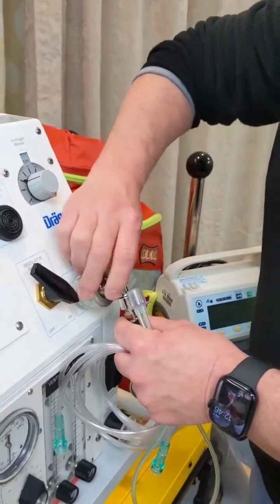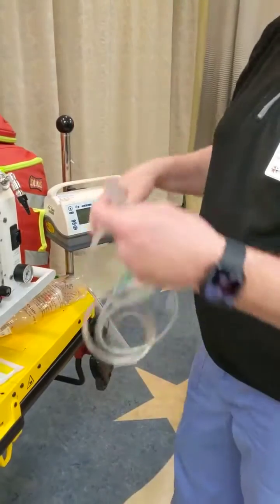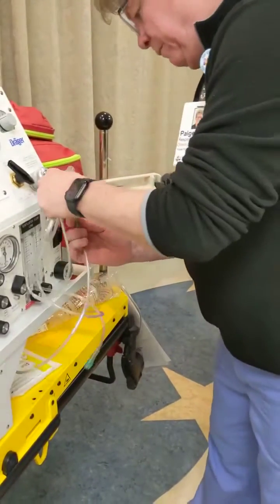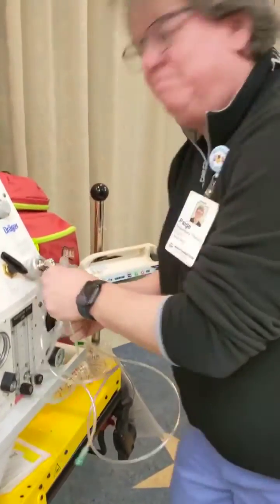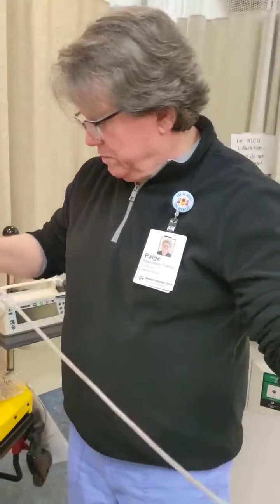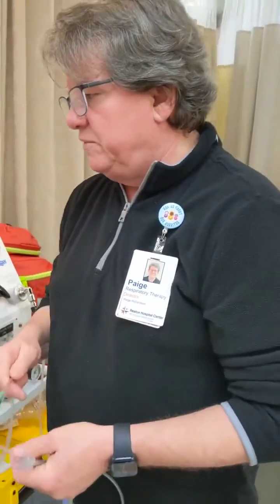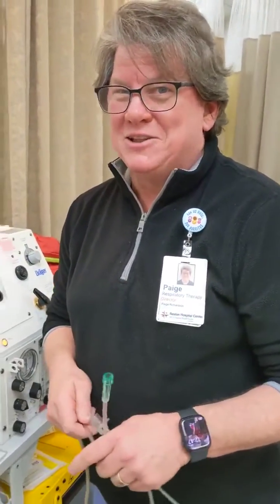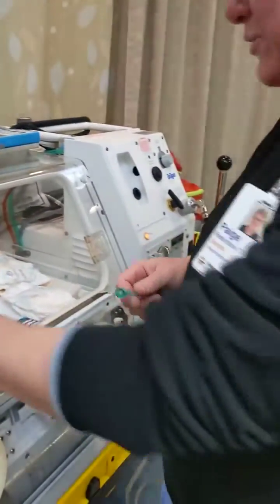So if I want to place my baby on high flow or just a nasal cannula, I'll tell you now the difference between high flow and a nasal cannula in a neonatal population isn't much. Typically high flow is warm humidified oxygen, but oxygen, whether it's humidified or not, that runs at 2 liters, is 2 liters nasal cannula, whether it's humidified and warmed or not. High flow is a higher degree.